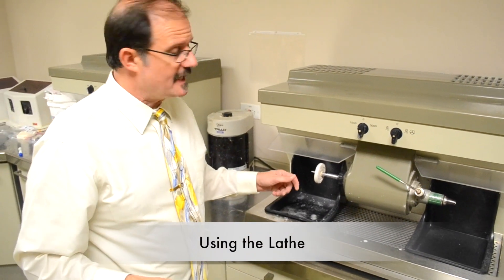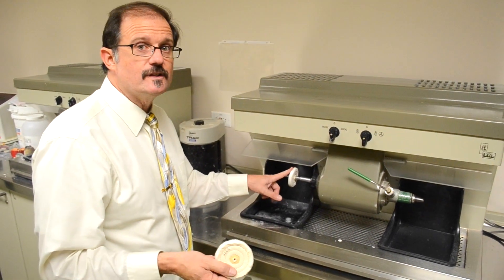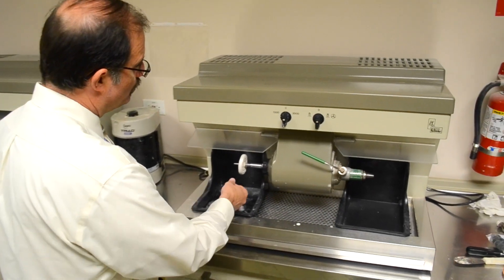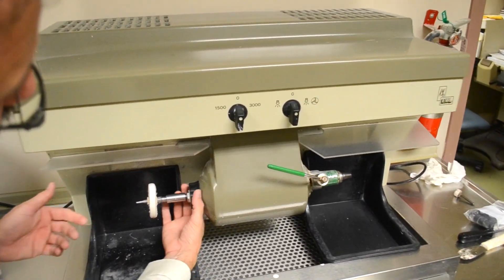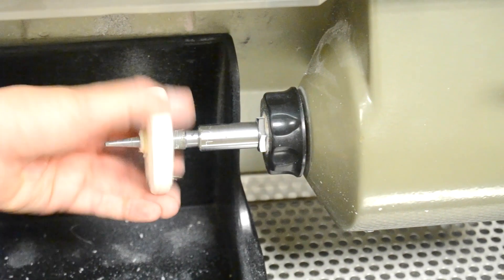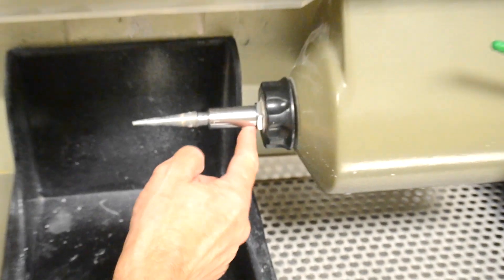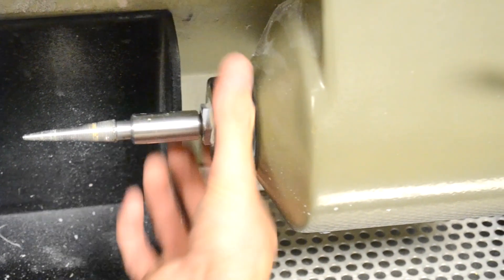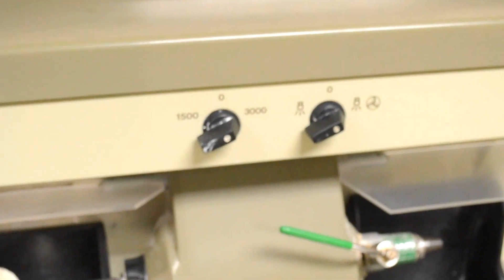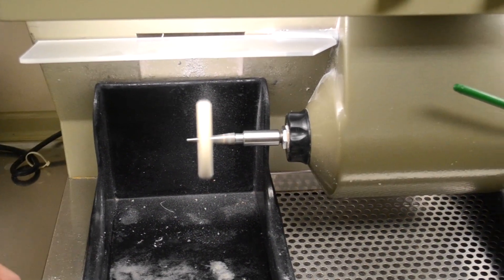Now I'm going to show how to take your polishing wheel and put it on a lathe, whether someone else's is on there and you need to swap it out or you're starting a new one. Take the lathe and turn it until the nut firmly hits the back of the spindle, then pull it forward and spin it off. Remember to release the brake back to the start position. Turn the machine on, and with a little pinch, introduce it and let go — and it's on. Now you're ready to pumice.